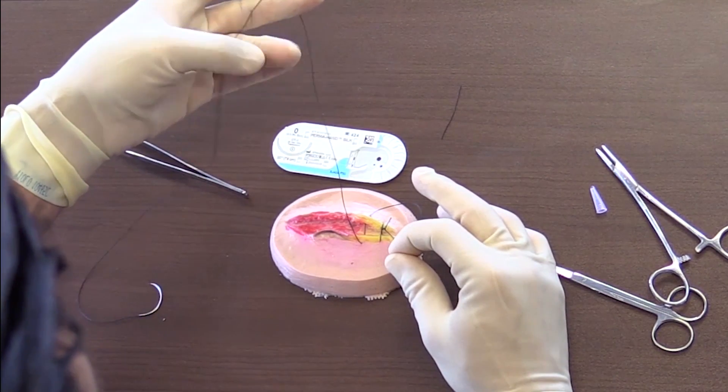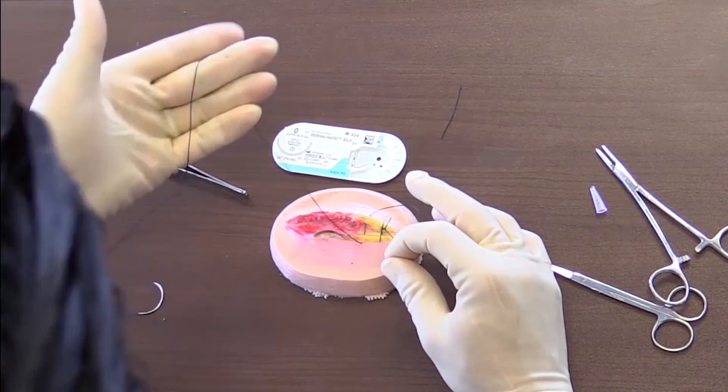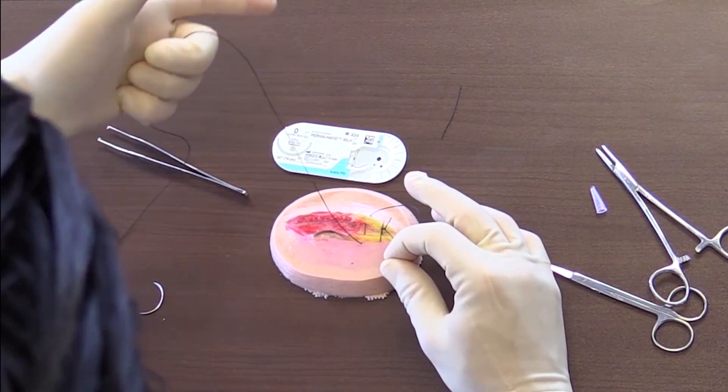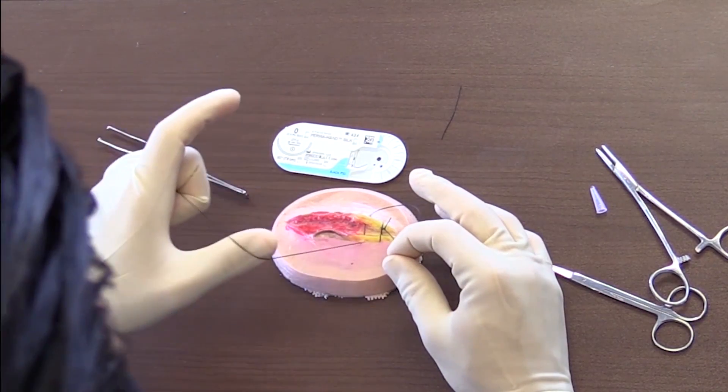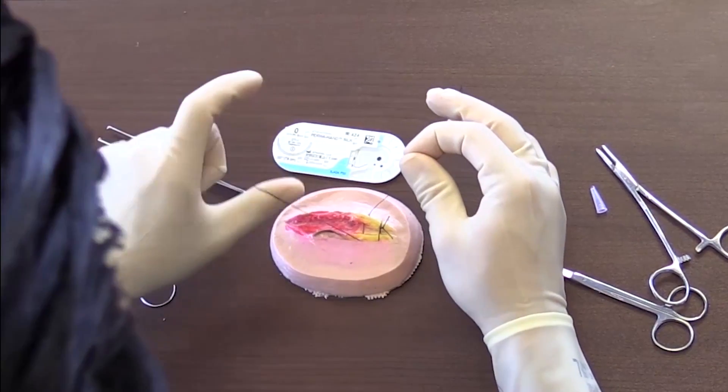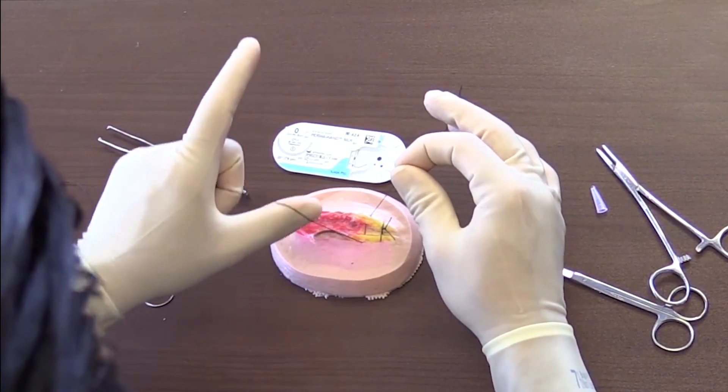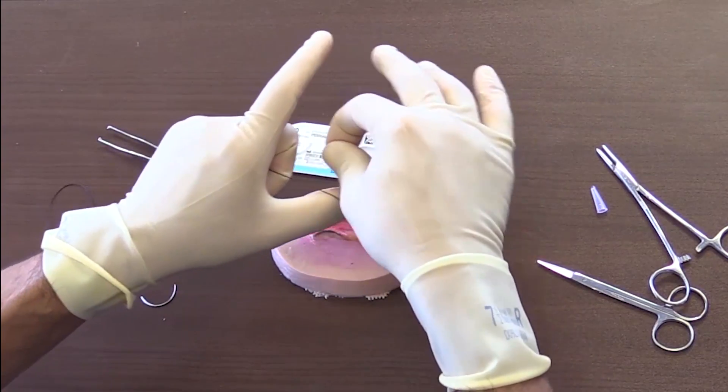Then I grab it, I would close that and bring over my thumb on the inside as you see there. And then you will need your index finger. Notice how my index finger is free, so I'm going to put this over. So my thumb goes through the hole.